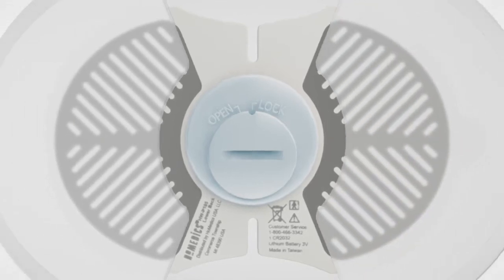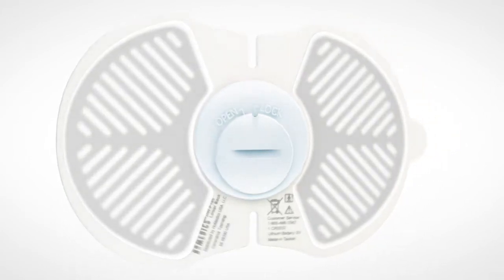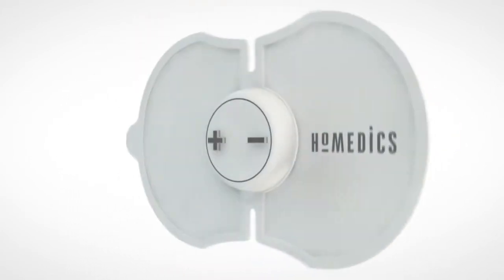Apply the Rapid Relief gels to the electrodes and make sure that the gels cover the area completely. Your Rapid Relief electronic pain relief pad is now ready for use.